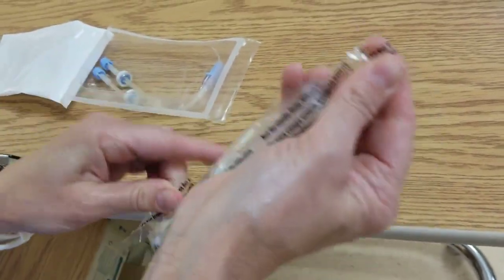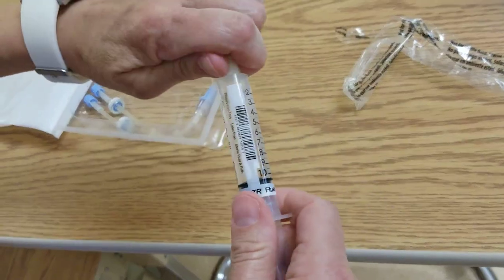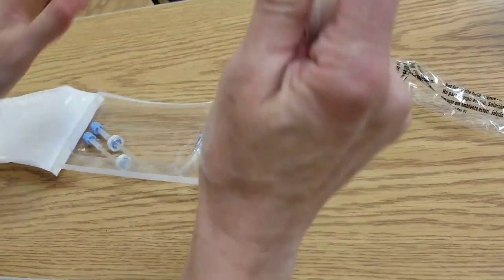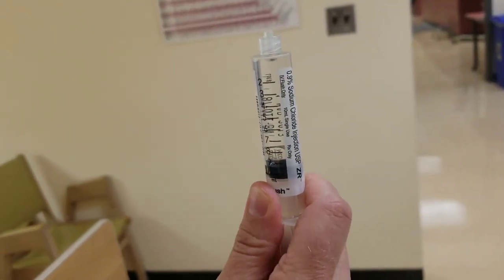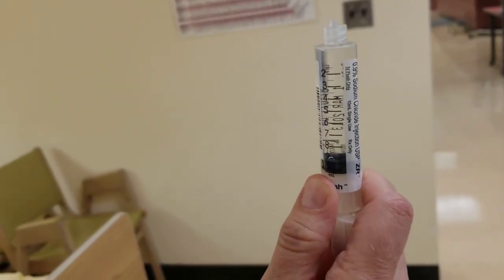This is actually a fairly simple thing to flush. I will eliminate the air out of my syringe. And you might notice that pulling back and then pushing up kind of does the job the best.